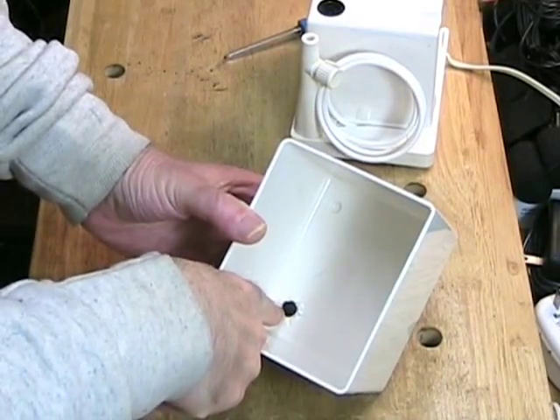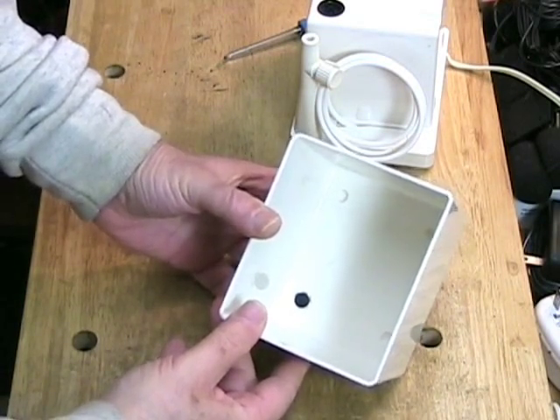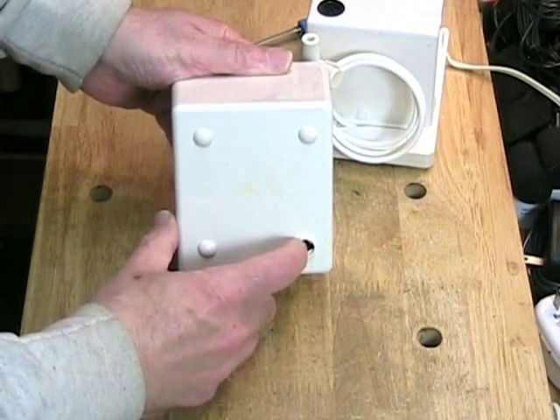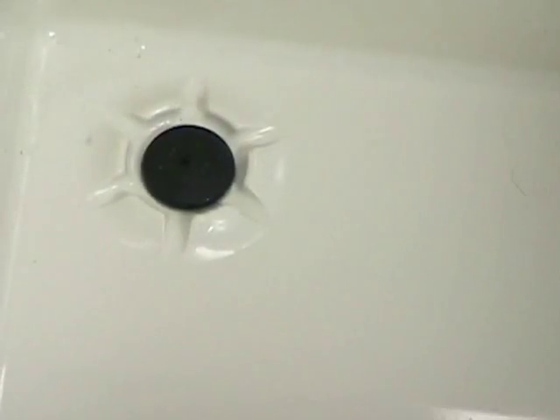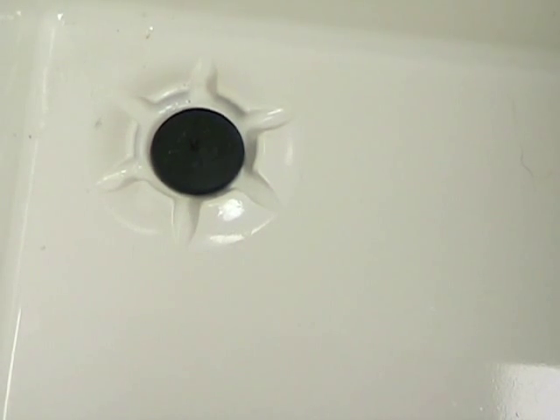The rubber piece here is actually a little tiny valve and it moves up and down very slightly. The way it is able to do that is because the underside of it is pushed by a piece of the machine, which pushes it up. When it is not pushed up, water cannot get out — it acts as a plug. The reservoir is sitting freely on top of the device and I'm going to push it down to show you how the plunger works. Watch the little black plunger. Did you see it go up? Now I have lifted it off and it is back down. It is a very small amount of motion. Works just like the plug in your bathtub drain.